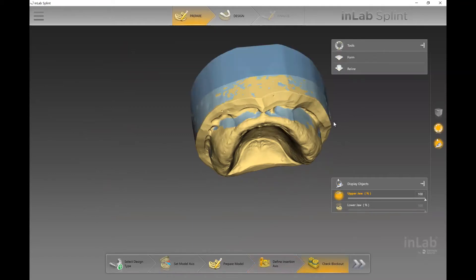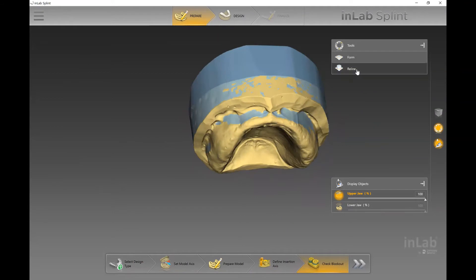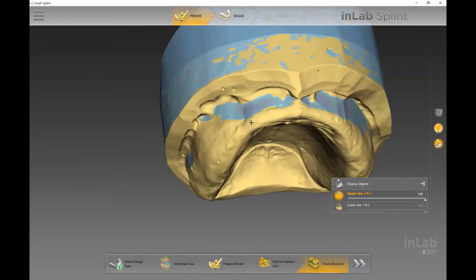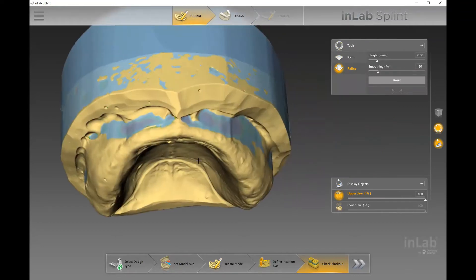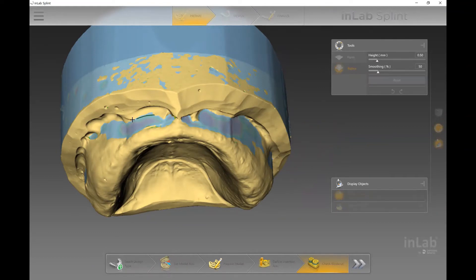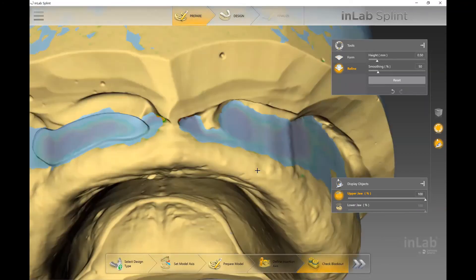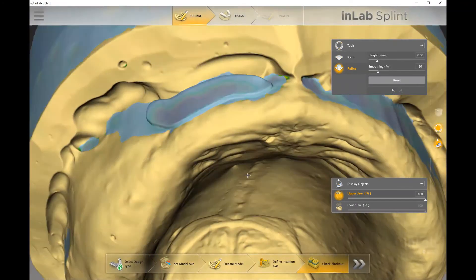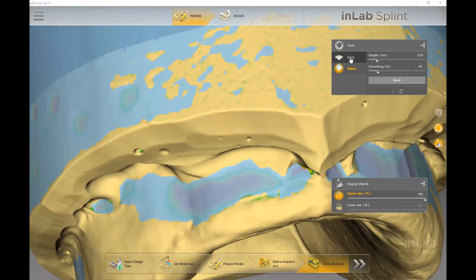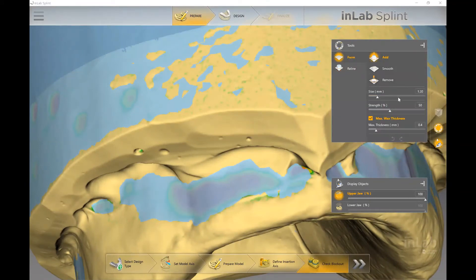The software generates the block out and we can determine whether to add more or remove any undercuts. In the 'Check Block Out' stage, if you turn on the reline option, you can see the undercut values underneath. With the reline option, on the right-hand side there's a height in millimeters where you can set a thicker block out. If there's an area of concern — like a really bony ridge — where the tray might engage too much with an undercut, you can block it out with greater thickness using the controlled height tool to draw your margin around that area.